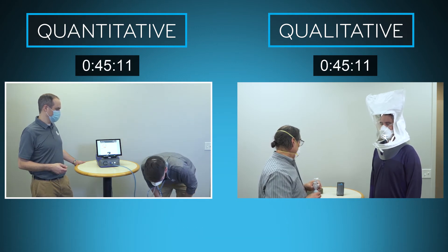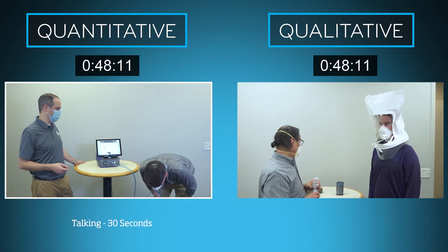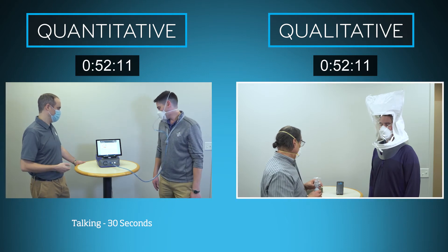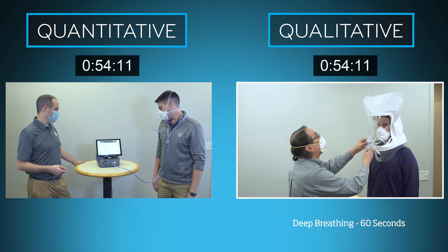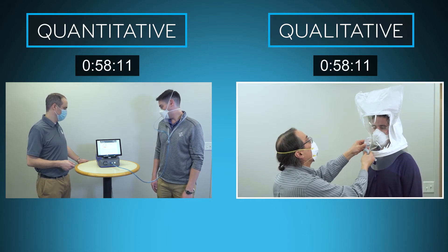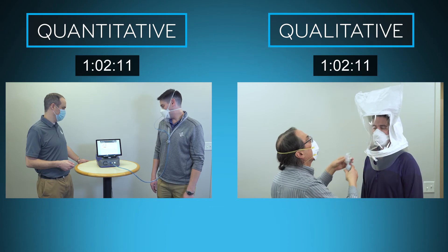As the first exercise for the quantitative method is shorter, the second exercise of talking for 30 seconds now begins. For the qualitative method, the second exercise is deep breathing for 60 seconds. While the relative timing of each method is the most obvious difference, this is only part of the story.